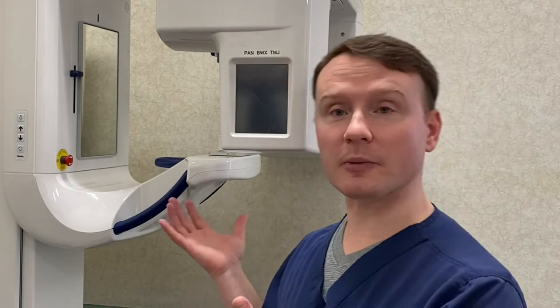This is our panoramic machine. It is digital, so unlike our other x-rays which are film, this one is digital, which we can see on a computer screen immediately once it's done and we can print out from a printer. That makes it convenient and saves a lot of time.